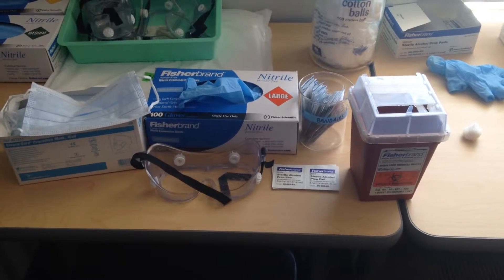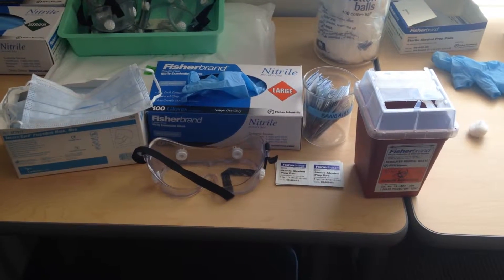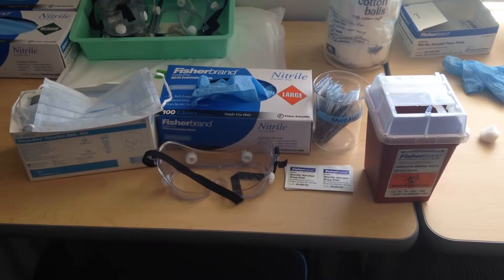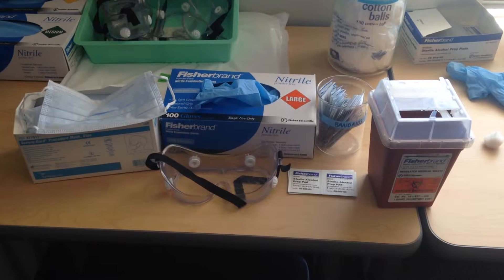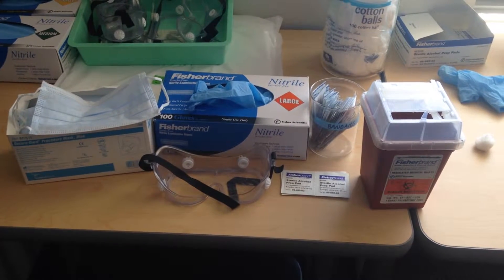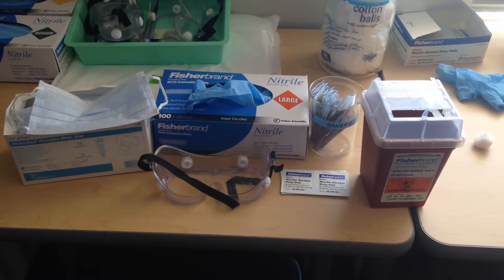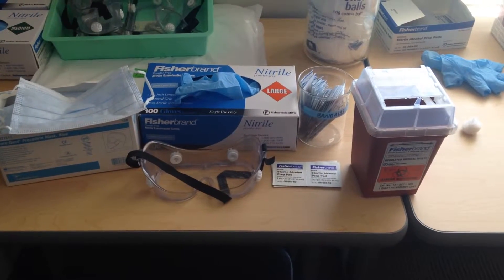In this lab we are going to perform three tests. We'll record the hematocrit value, we'll measure the concentration of hemoglobin in the blood, and also we will do the blood type.